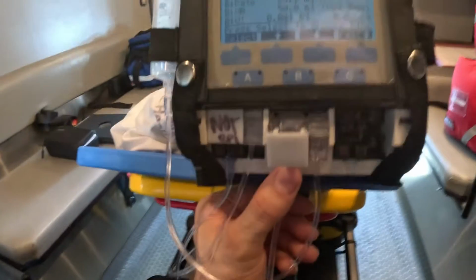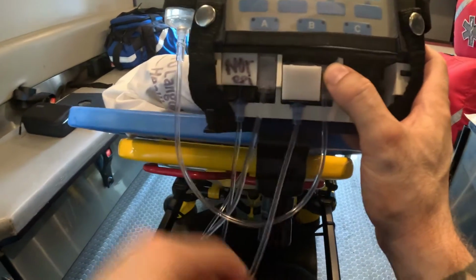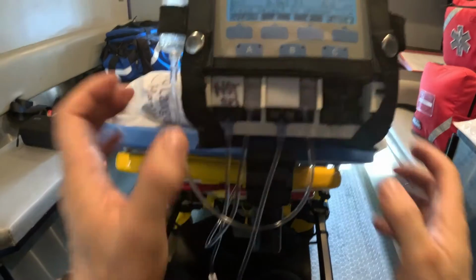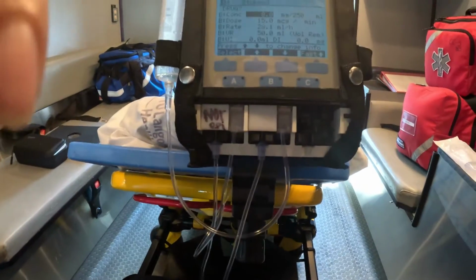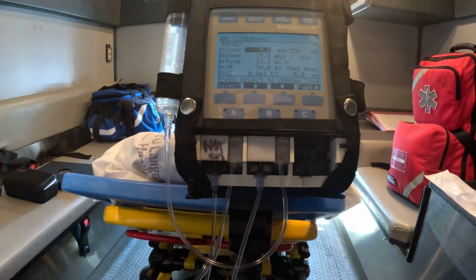What I want to do is first, I want this blue tubing at the bottom, I want to put it in the recess. And then I'm going to push in the cassette. So tubing goes in first, and once the tubing is nice and snug inside, I'm going to use my fingers to basically push the cassette in like this. If you did it right, you're going to hear that audible double beep. Audible double beep confirms that the cassette has now appropriately been placed.